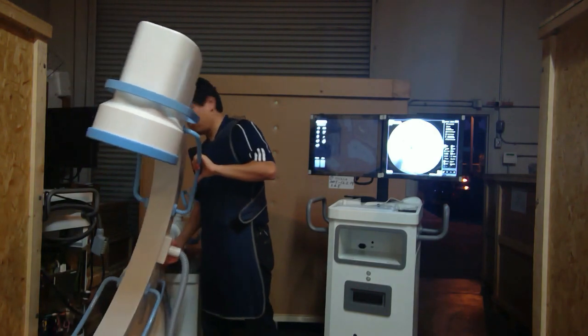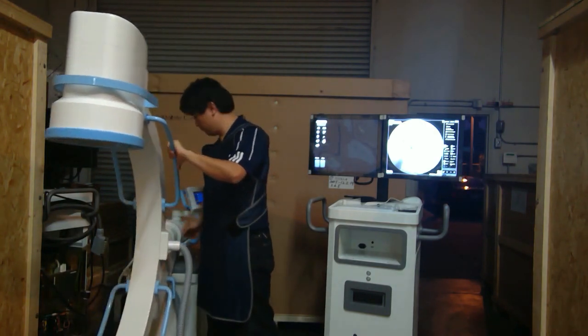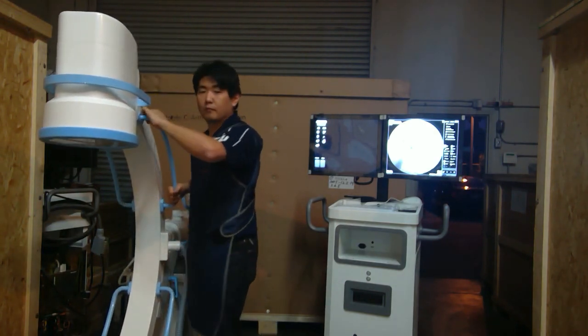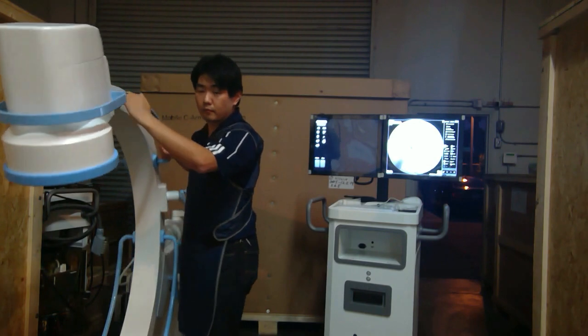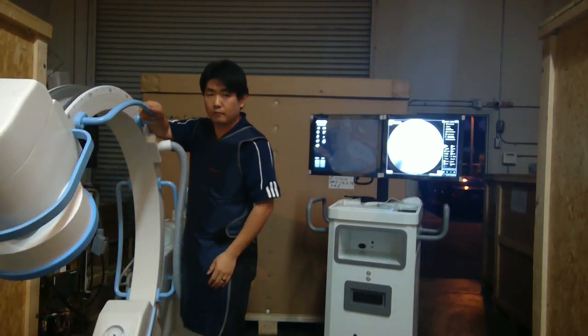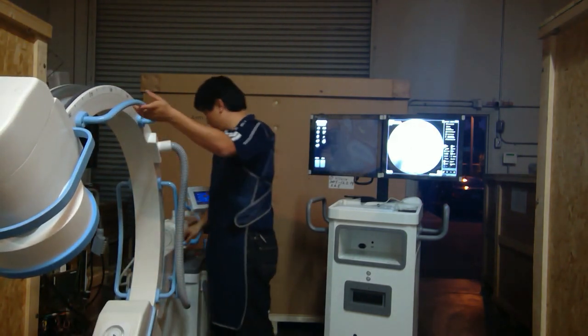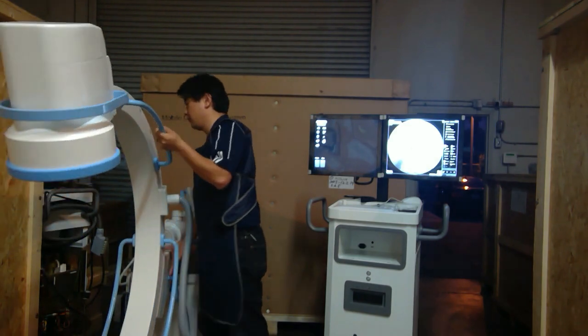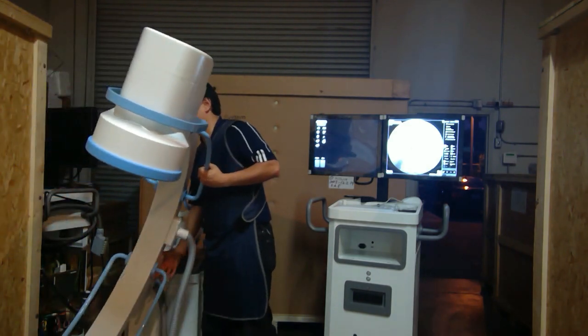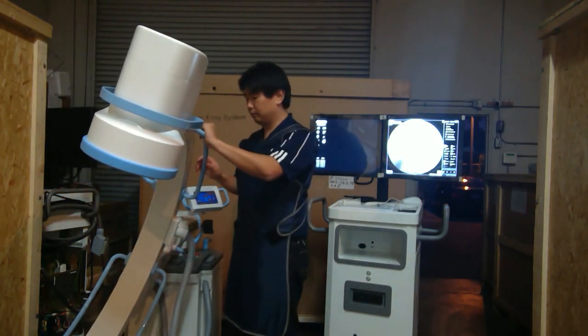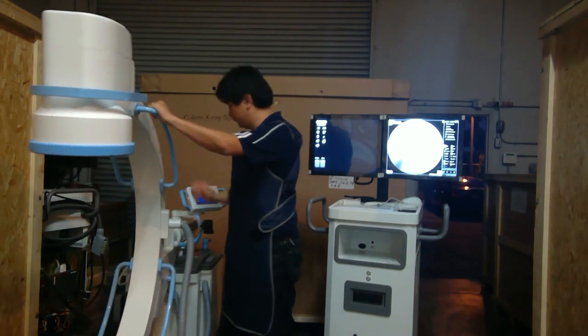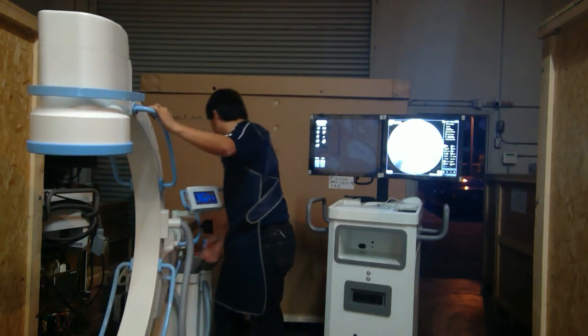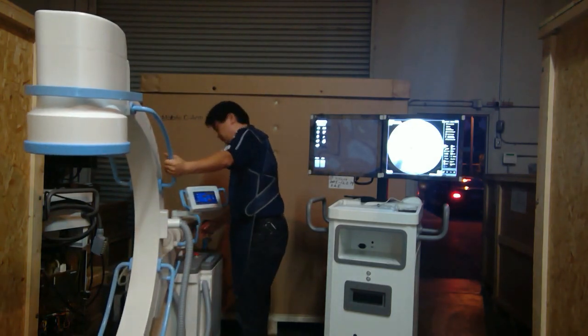It comes with very easy-to-use handles to unlock the movement. As you can see, it's very flexible, and it comes with a 45-degree over-rotation, which is pretty impressive for an II-based system and is capable of doing the majority of procedures out there, maybe even without using a tilt version of the table.